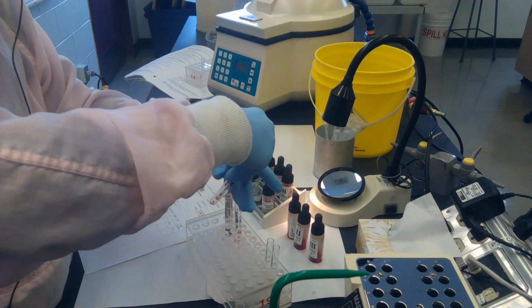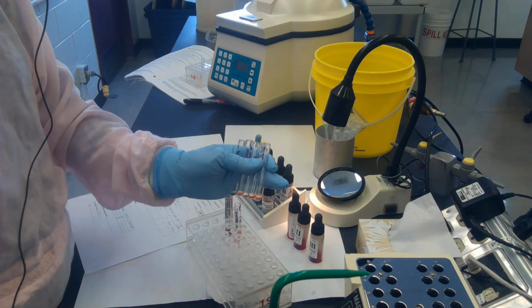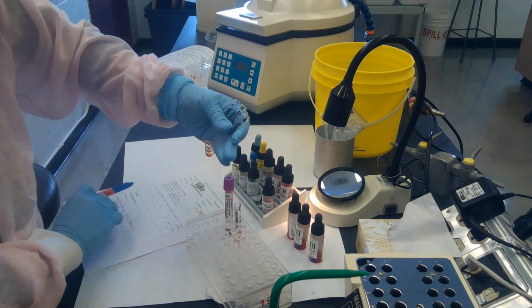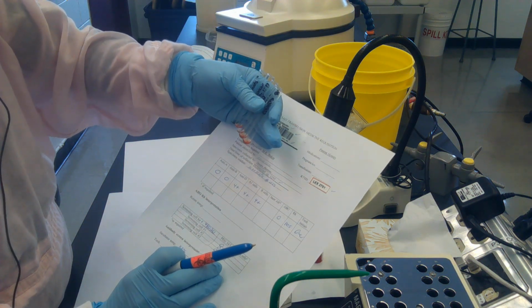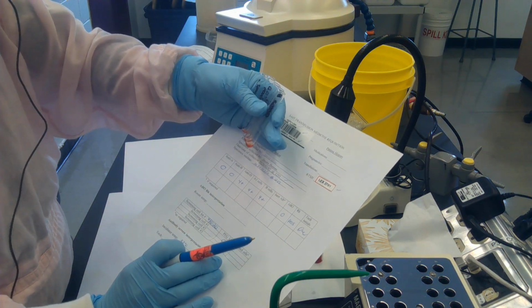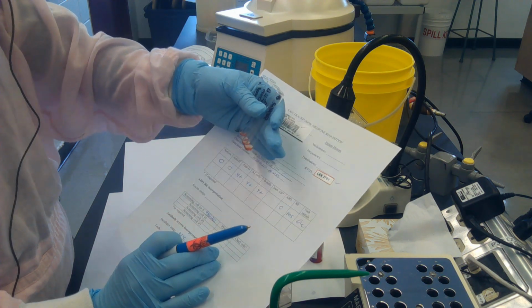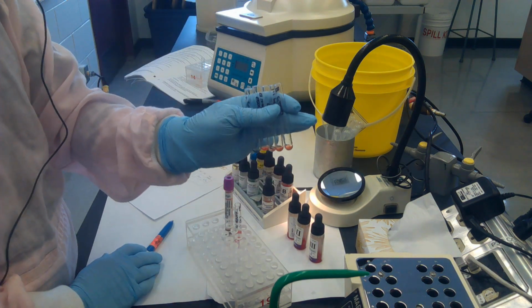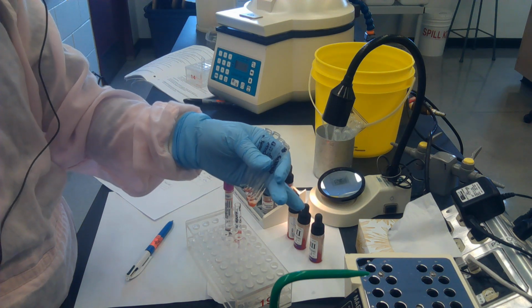So I'm pulling them out, and I'm looking at them again and saying to myself, yep, that looks like negative with the anti-A, negative with the anti-B, 4+ with the anti-D, 4+ with the A1 and with the B cells. Yep, that's an O person, and I've interpreted it as O pos. Once I've done that, I'm able to throw these out, but please do not throw these out until you've done that last check, okay?